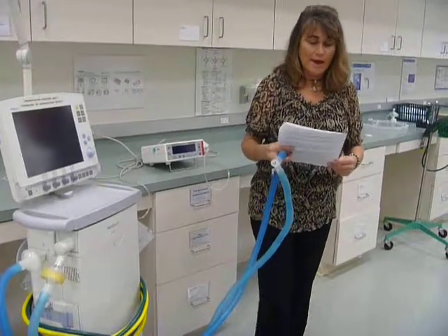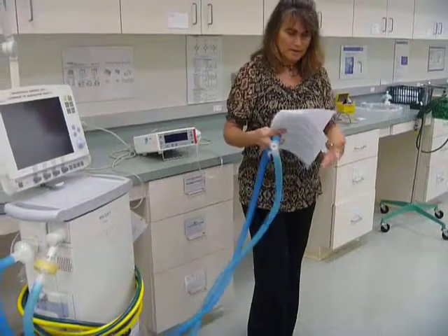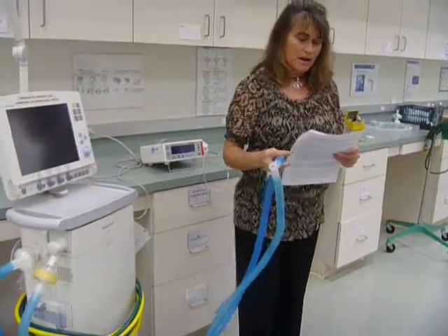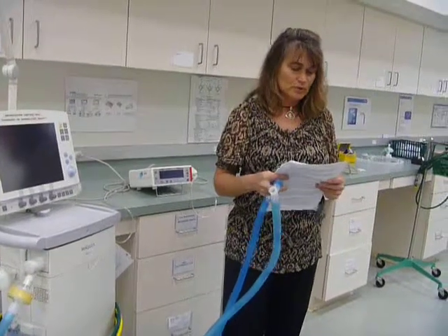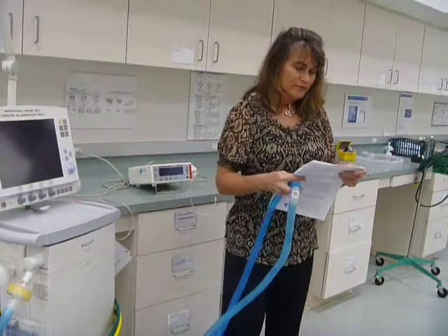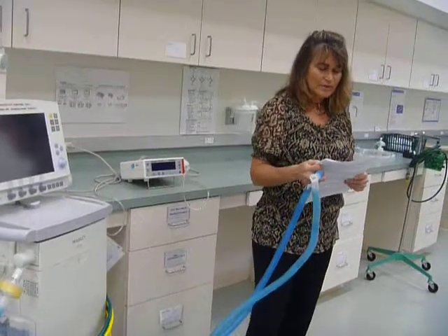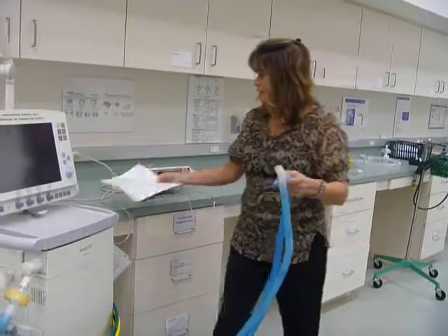The patient Y and rebreathed air. Is that what you have next? Find the Y in the patient circuit. You found it already? Air in the ventilator circuit that is between the Y and the endotube is rebreathed by the patient. For this reason, it is also referred to as dead space. And then it tells you to describe the devices that cause dead space to increase. Let me give you an example.